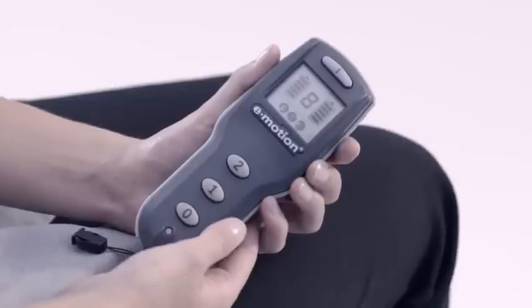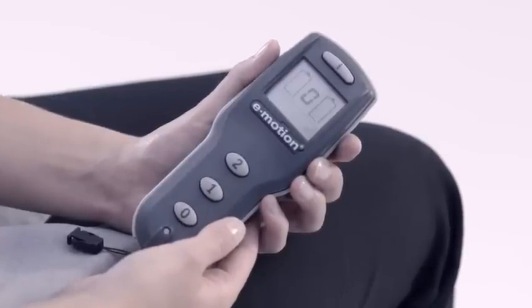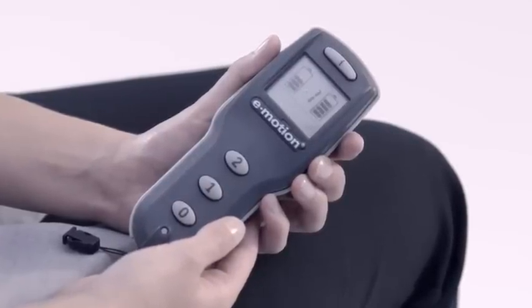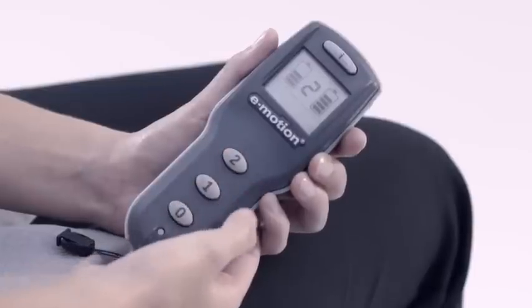E-Motion is switched on and off using the remote control. Two selectable power levels can raise or lower the thrust of the motor.